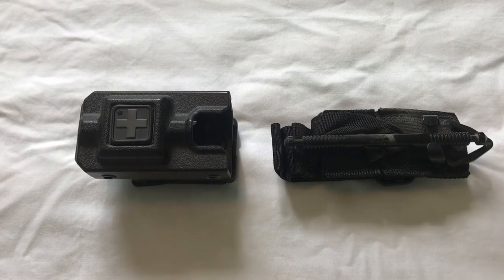My preference is the soft because it doesn't have the velcro rubbing everywhere like the CAT does. There are some other benefits to it and I can describe those later in a different video. This tourniquet holder does come in many different colors, and you can actually get it in a basket weave pattern as well to match everything else on your duty belt.